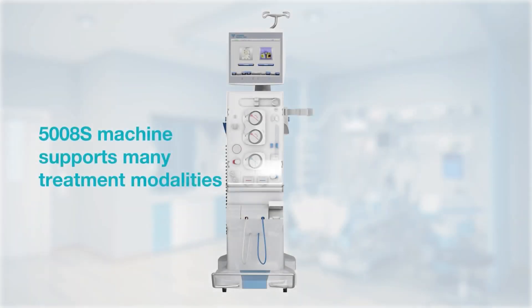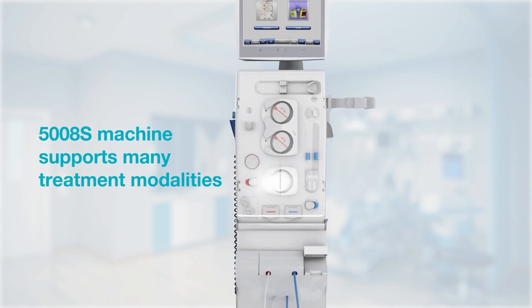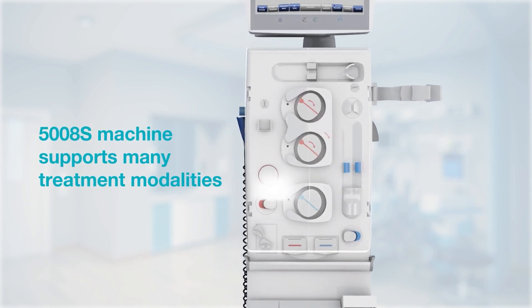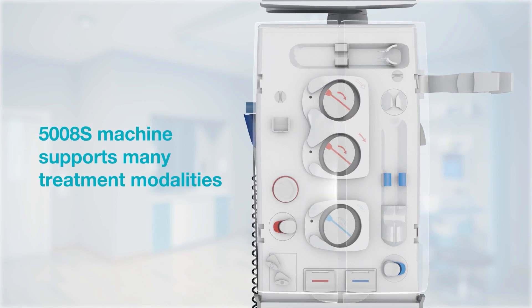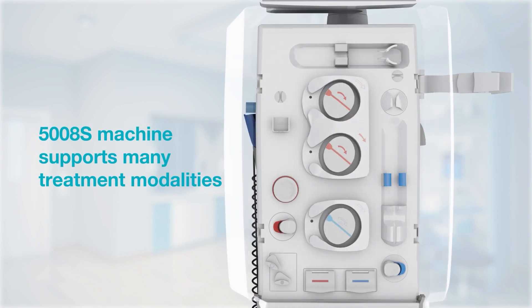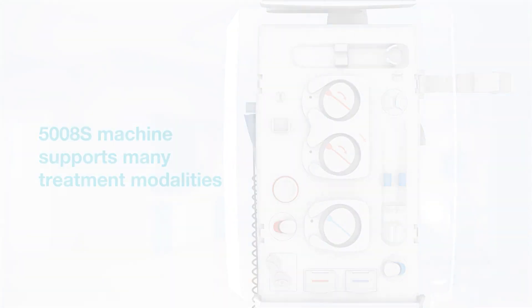Welcome to the 5008S machine connection demonstration. Although the 5008S therapy system supports many treatment modalities, its assembly remains the same for any treatment.